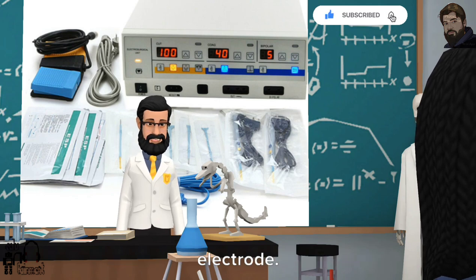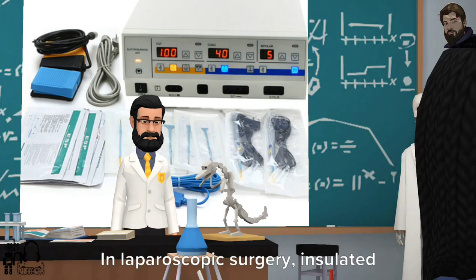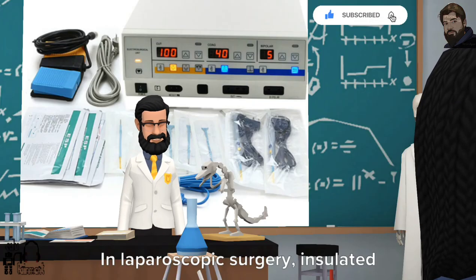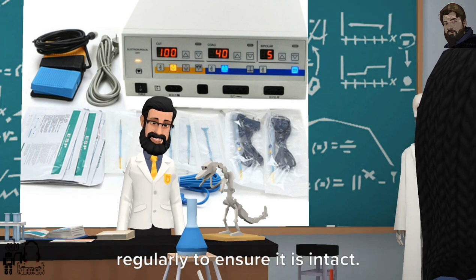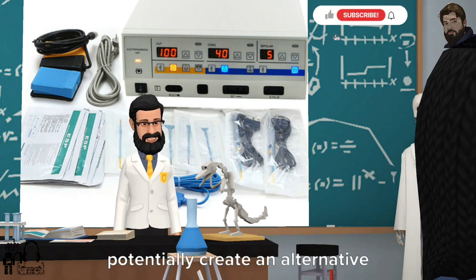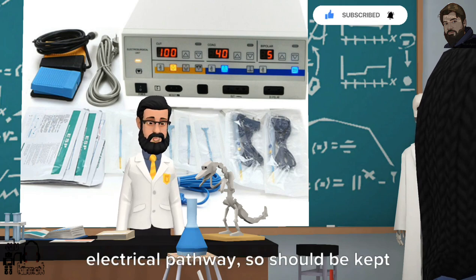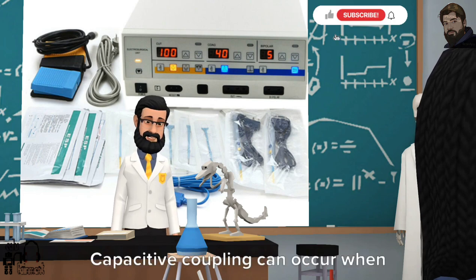What is laparoscopic diathermy? In laparoscopic surgery, insulated equipment must be used and checked regularly to ensure it is intact. Non-insulated metallic equipment can potentially create an alternative electrical pathway, so should be kept at a safe distance from the active electrode.